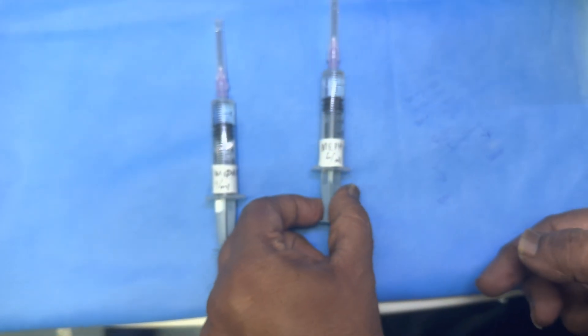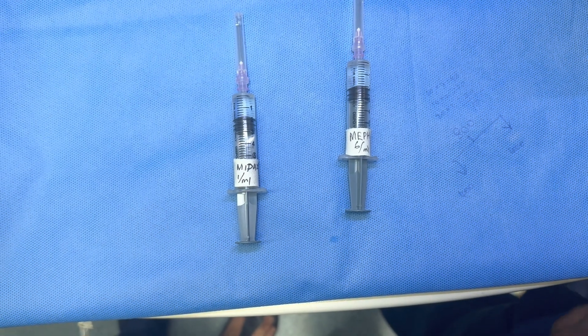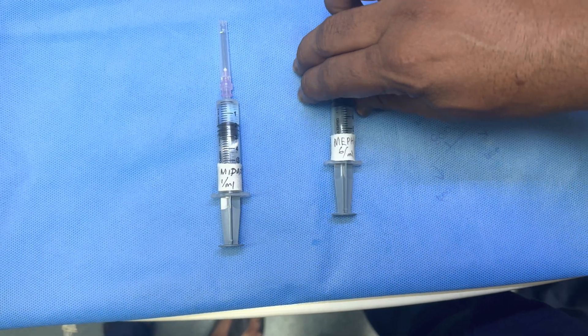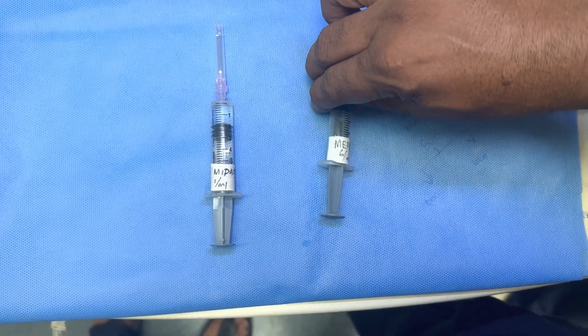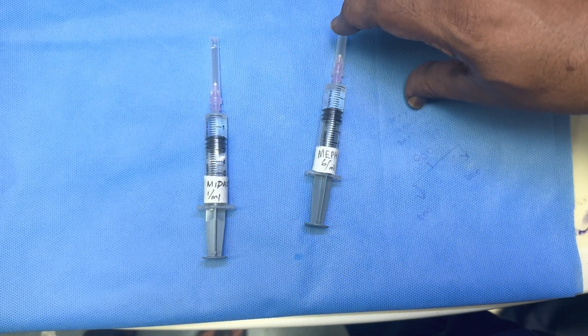Now, if you keep the syringe like this, the label should be seen like this. The syringe will not lie like this — it will come down like this.